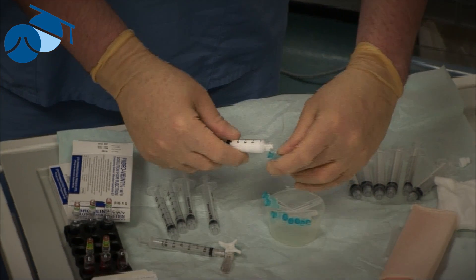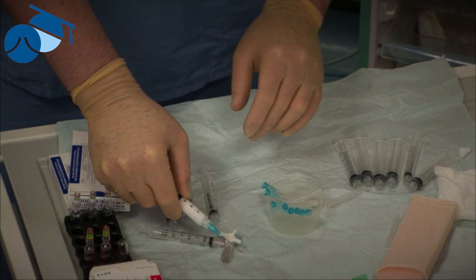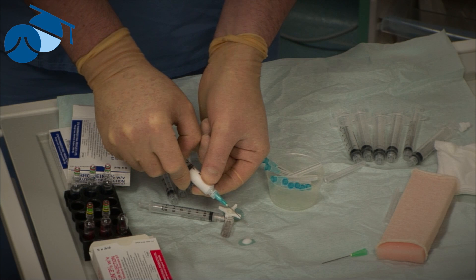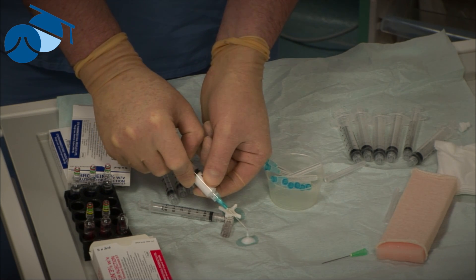When we come to inject it, we usually use a blue needle. The foam can then come out without being broken down. If the needle is too thin, what ends up happening is the foam itself is broken down and comes out just as liquid sclerosant and gas.